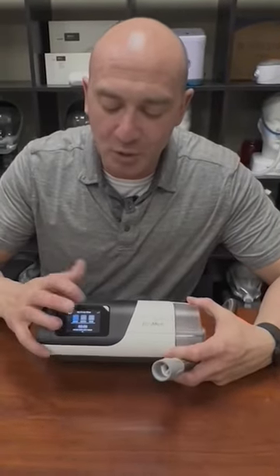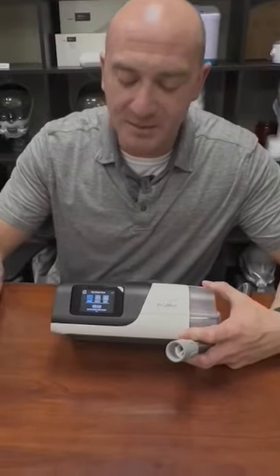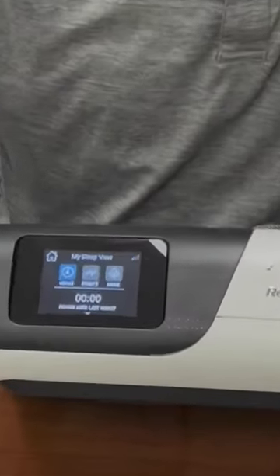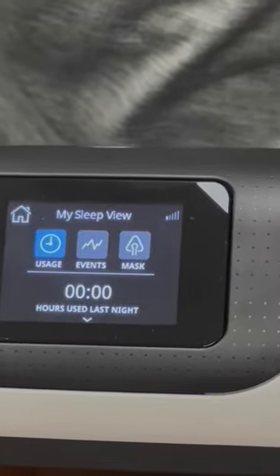But the little blue piece there is basically just saying it's going through a cooldown function. That shuts down in about 20 minutes.